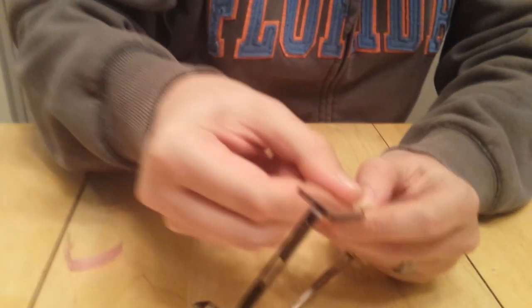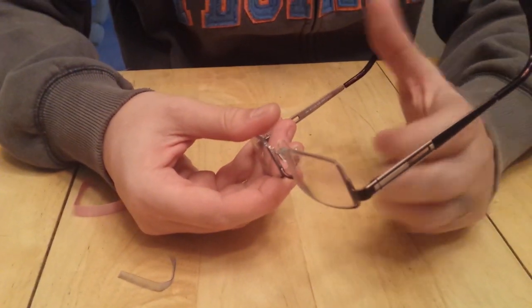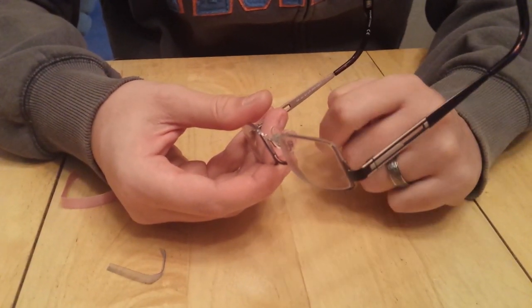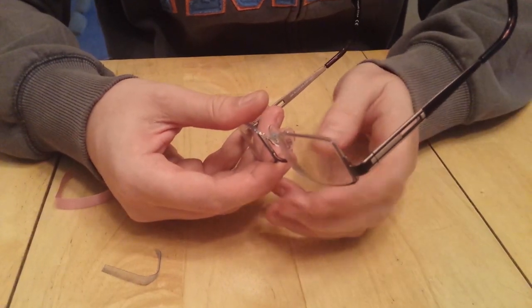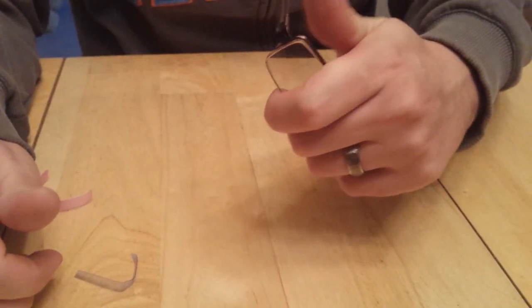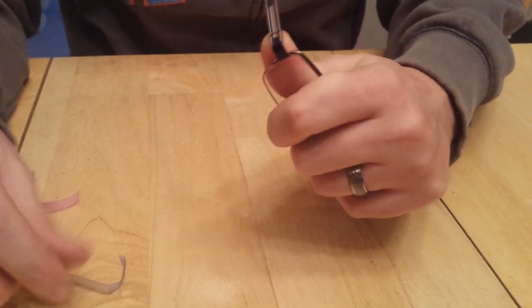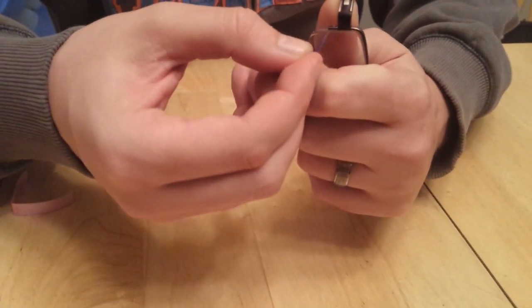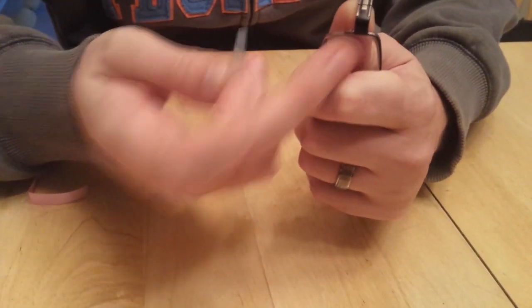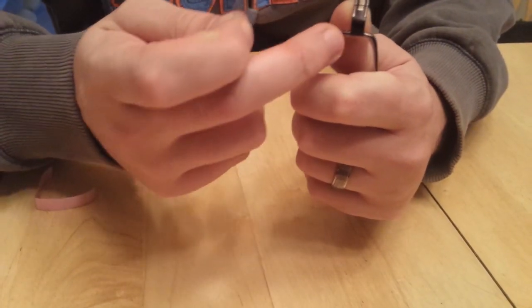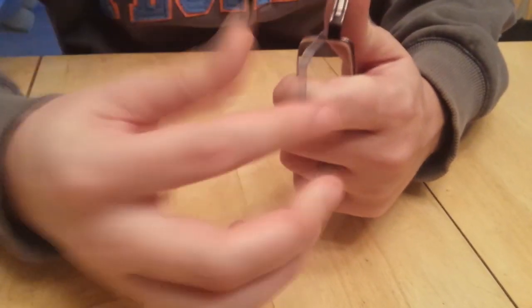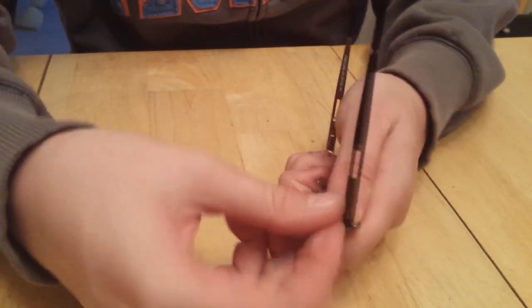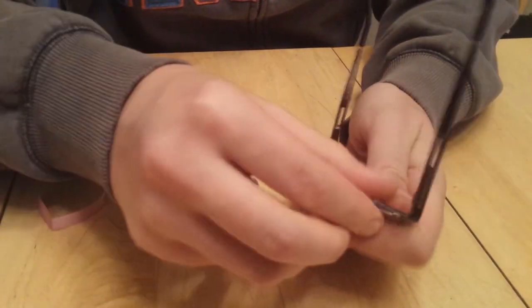The other side is a little bit trickier to pop the gap open. Your hand will rest on the top of the frame and you'll still use your thumb to push out, creating that little gap where the frame ends and the filament begins. Once you've got that in there, you can pull and pop it out and the lens comes right out.